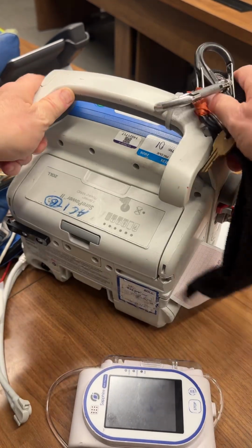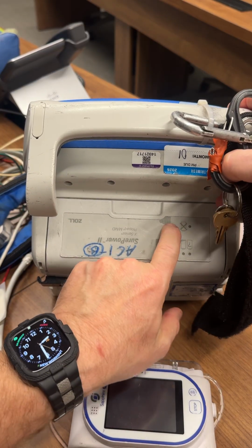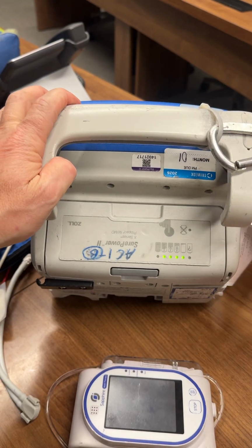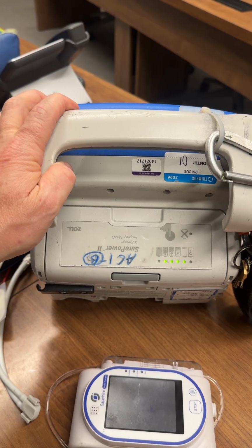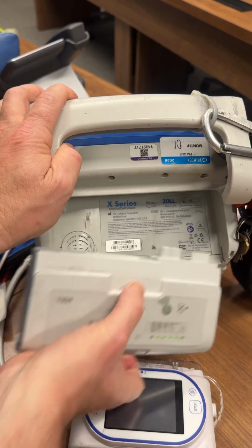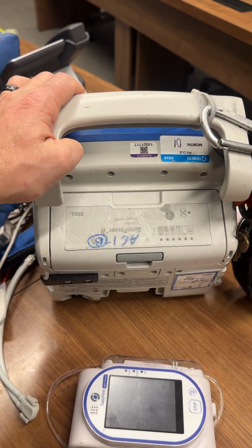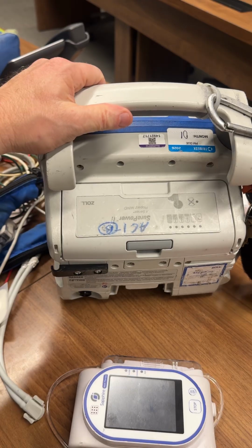To change the battery out, you need to look at this. This is something that's very important. You need to check it the first of your shift every day. You'll do a battery check, so you'll hit this button, and it will give you 3 or 4 in the green. If you got 3 or 4 in the green, you're good. If you need to change it out, you just lift this up, slide the battery out, slide a new battery back in, but make sure before you put a new battery in off the charger that you actually do test it.